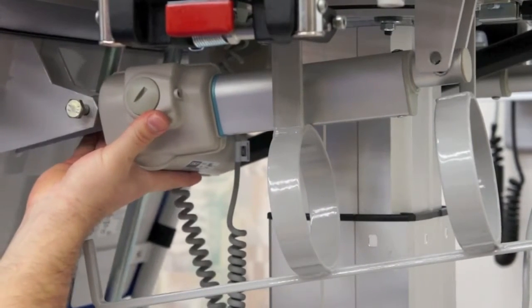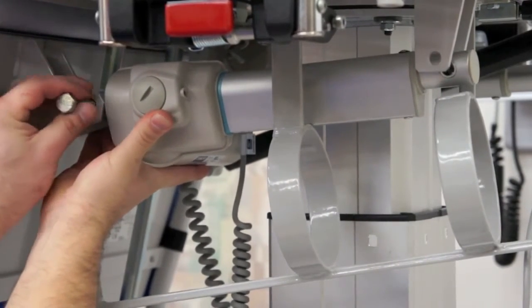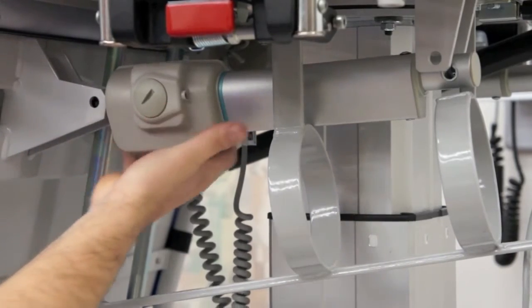When removing the bolt closest to the leg section, lift the leg section slightly to allow room when removing the actuator.